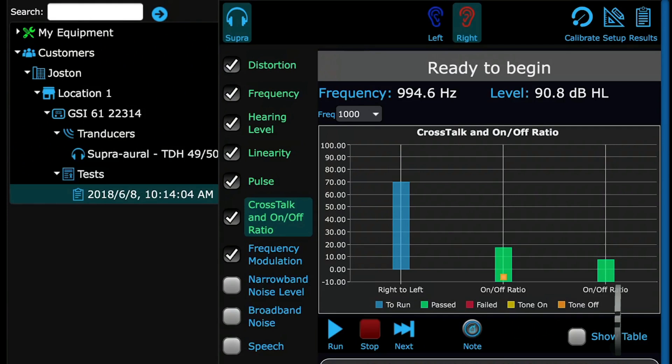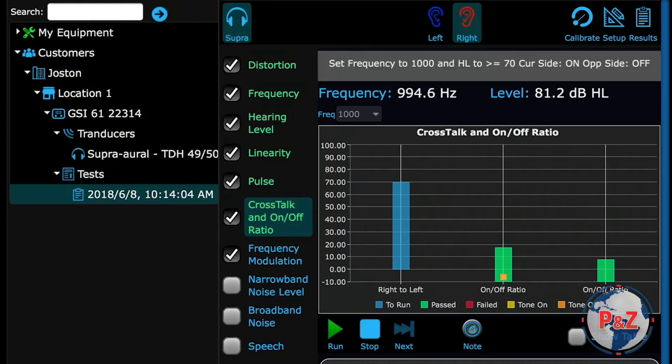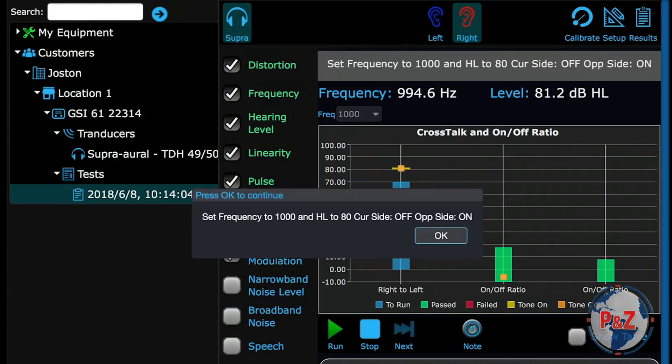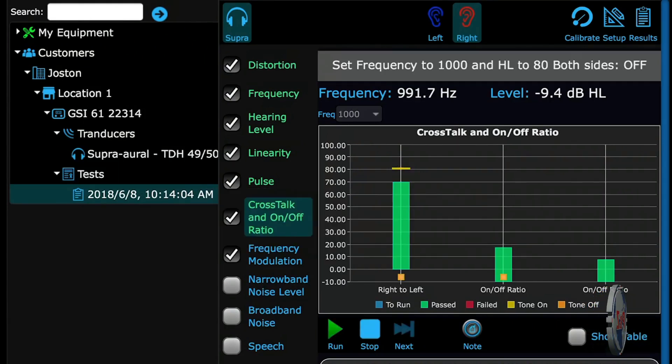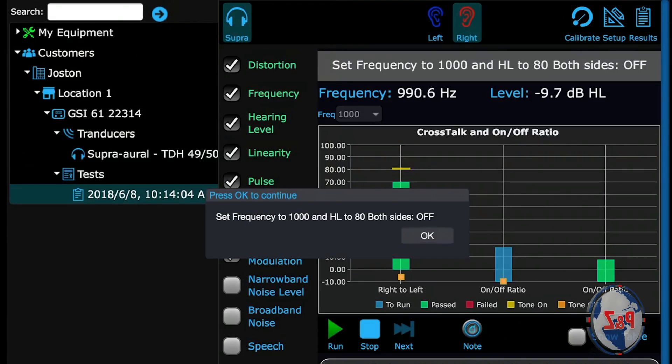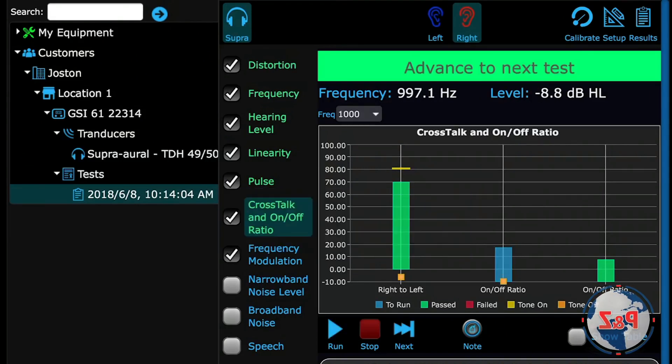Cross-talk finishes on this side. Press run, follow the prompt, press OK. And you can choose to stop the test here or run the other two steps again.